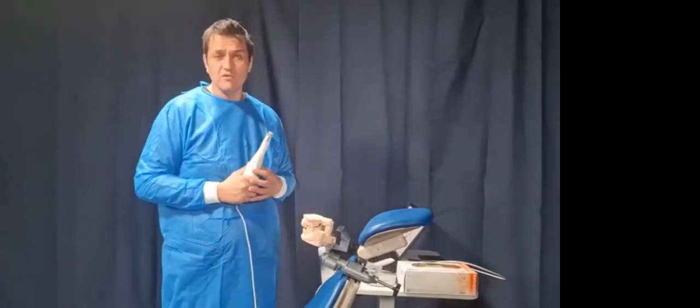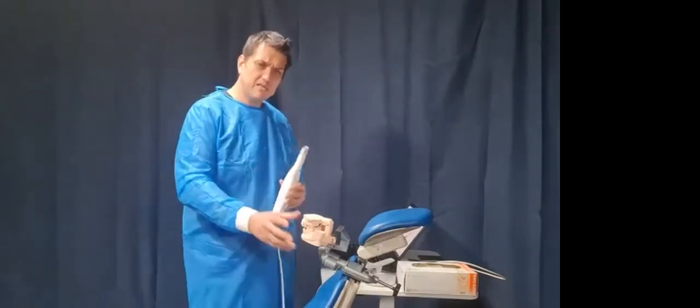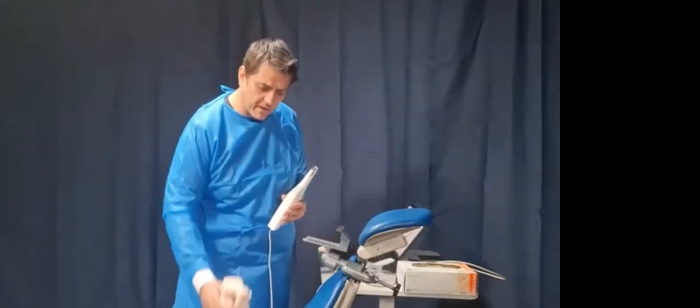Now, if that beautiful sound doesn't come, it's not the end of the world, because you still have the manual relocation, but you're giving the manual relocation as many points of contact to be able to relocate that for you. Now I'm going to put in the next case, and I think we're actually going to have to use that for the next case. And I don't know why. It actually worked in the mouth, but this one's actually quite tricky. But I'm going to show you the entire path again. First things first, start with the scan path.